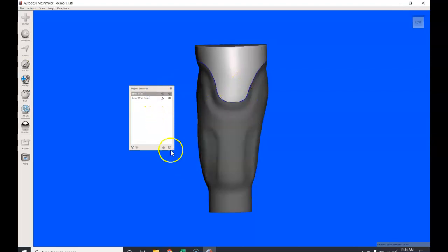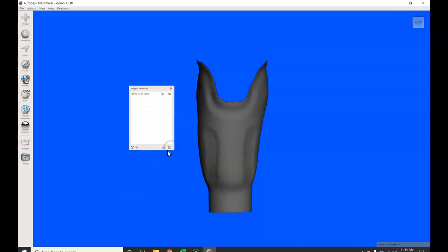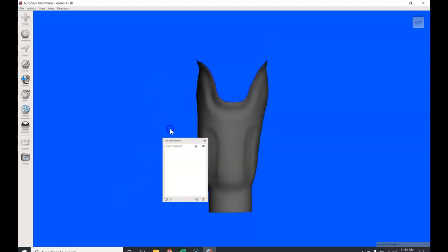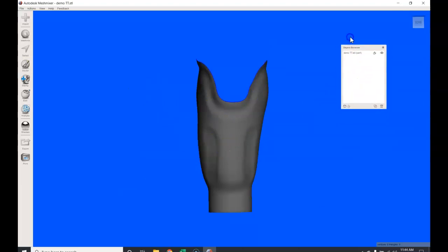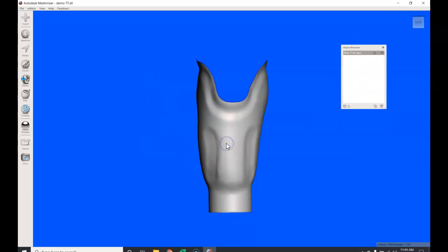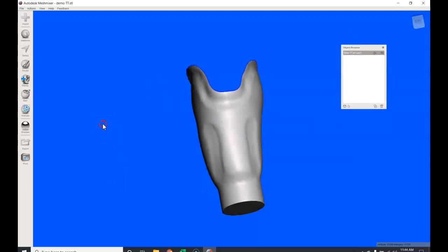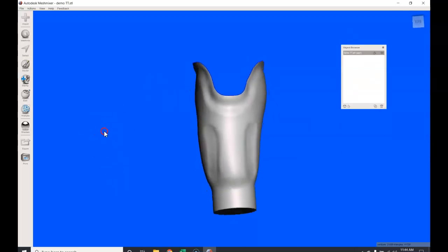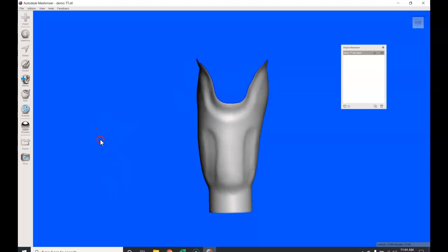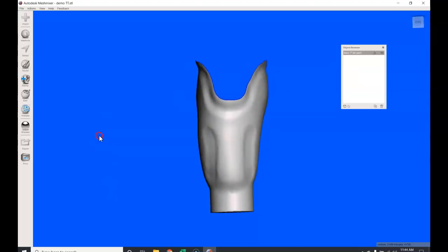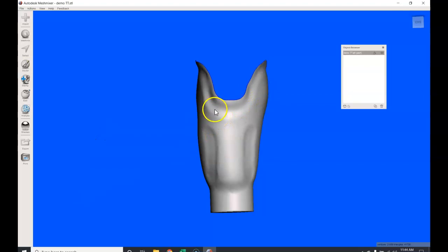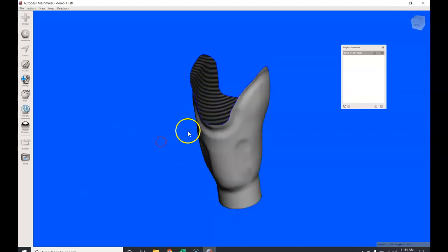Next thing we want to do is we want to separate this white model from this painted orange. We're going to edit, we're going to scroll down to separate, or you can hotkey Y. And if you notice, this is my original imported file, this is my part. We're going to get rid of the original; I'm actually just going to delete it out of there. We're going to come over, bring our browser, I'm going to single click on this; it's a white sort of gray shade.